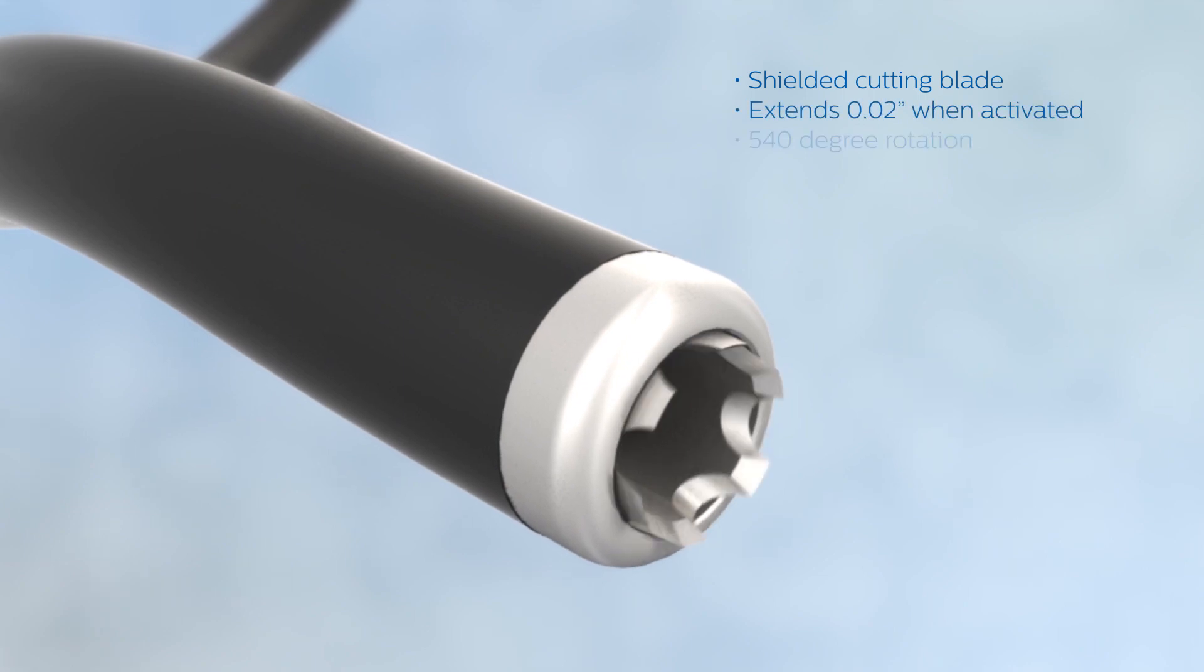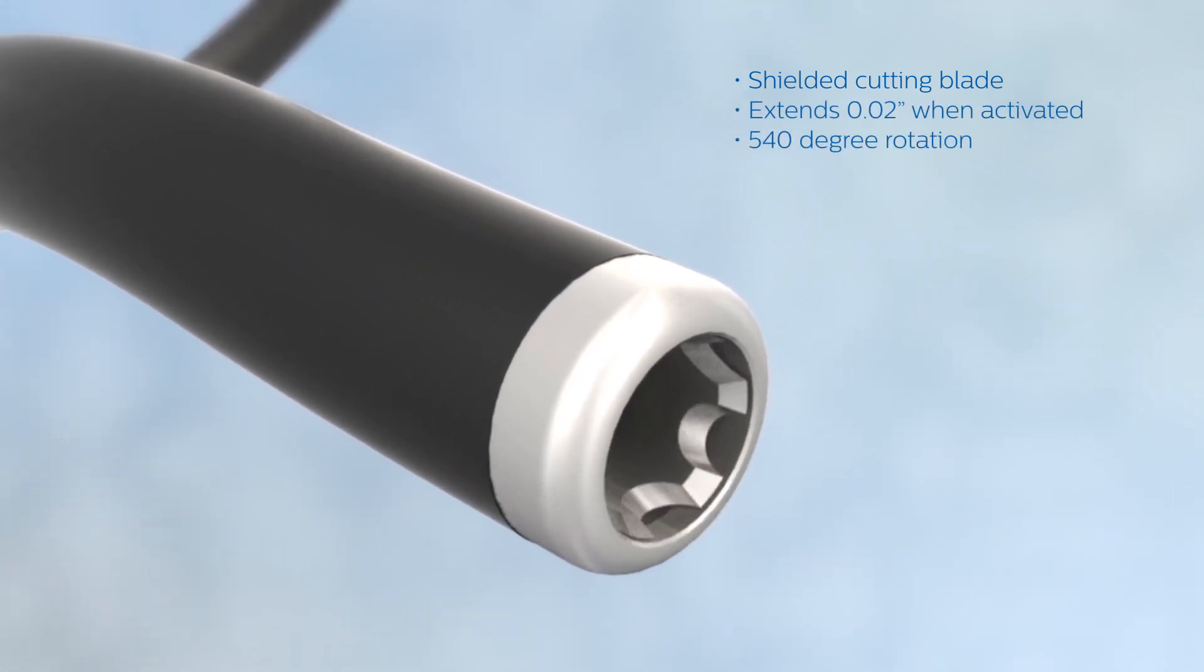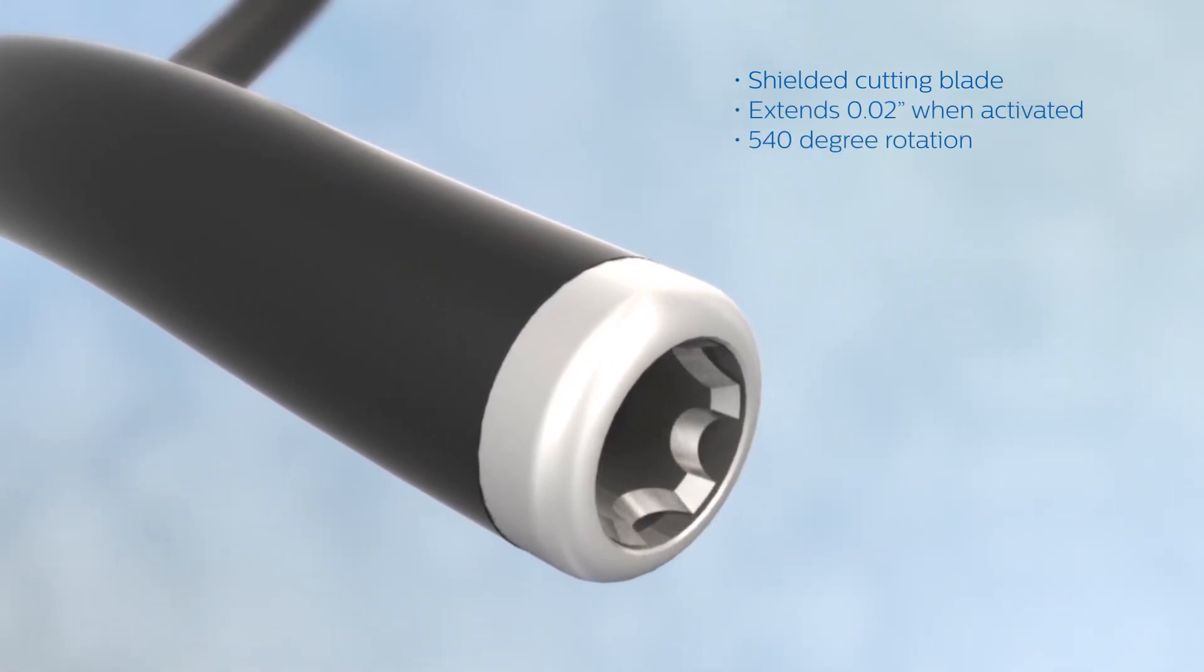A shielded cutting tip allows the blade to be extended only when activated, offering a full 540 degree rotation.